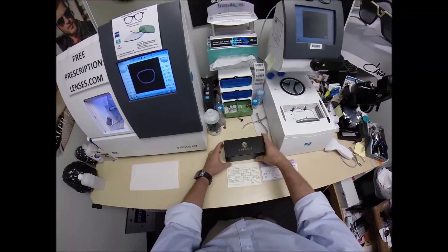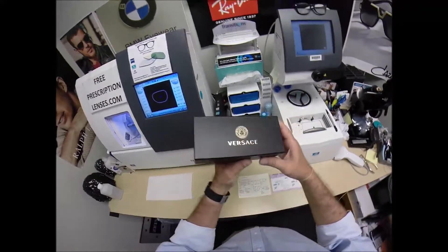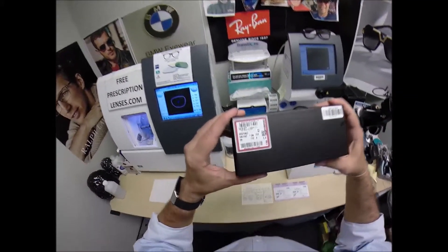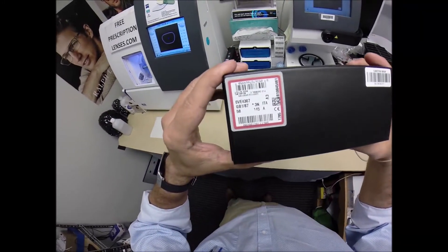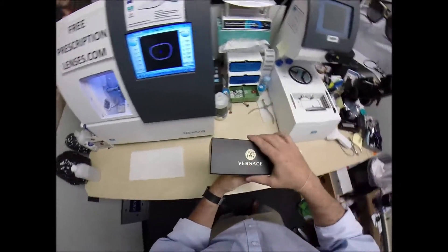I'm going to show everyone else how I bring that love and feeling when I cut clear lenses with anti-glare for your Versace. This is the model number 4307, color GB1, the classic shiny black and gold in the 58 eye size.